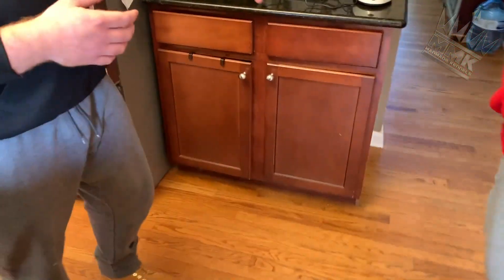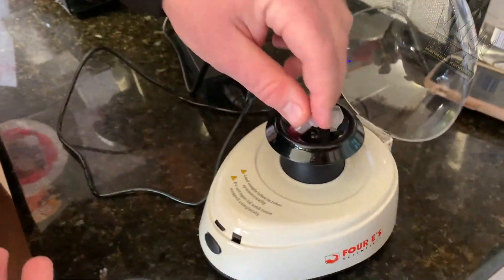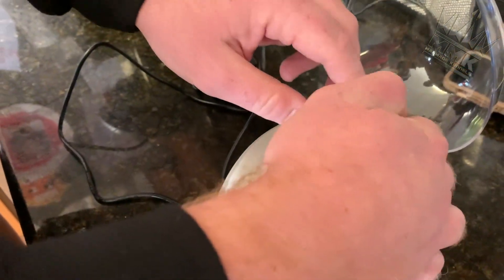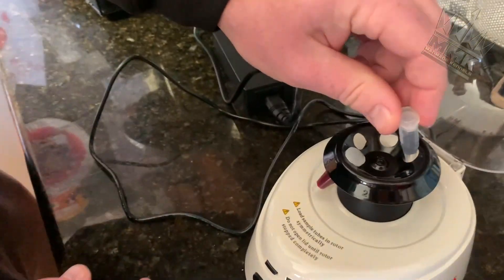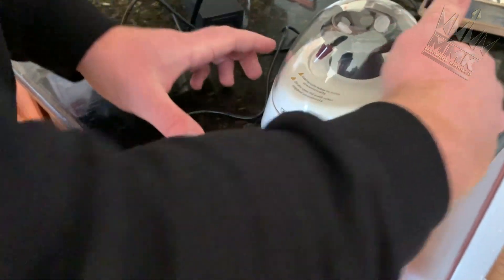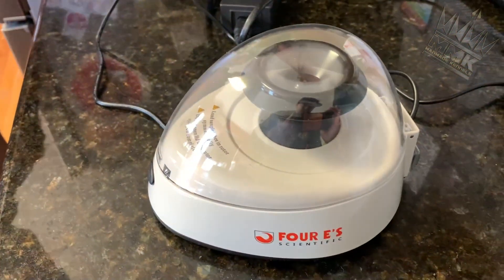We're going to start over here. We've already taken our blood sample — you're going to want about at least a cc of blood. And we're going to spin this down in our centrifuge. There's a balancer in there. For optimum balance and accuracy, you want to fill one of these up with water and put it on the opposite side. So we're going to shut this.